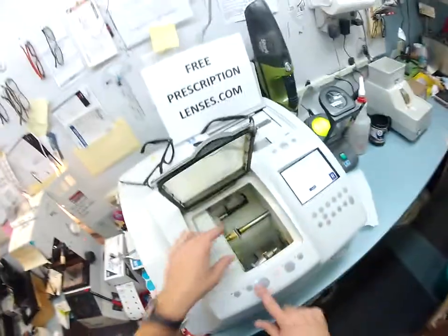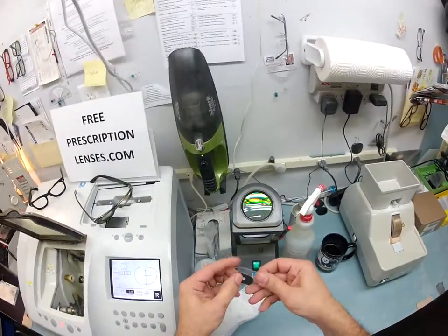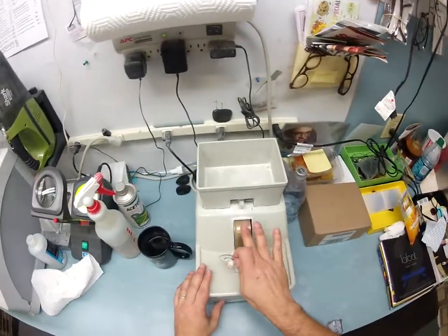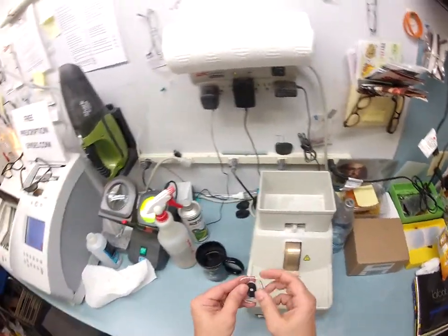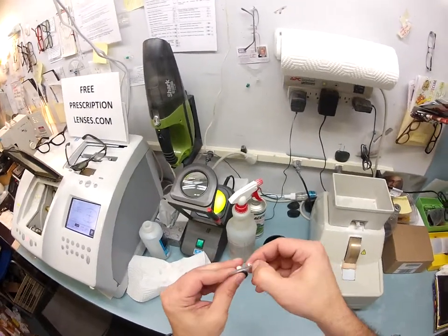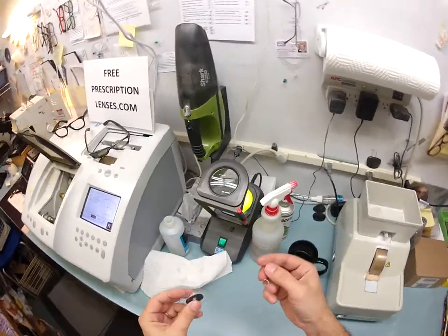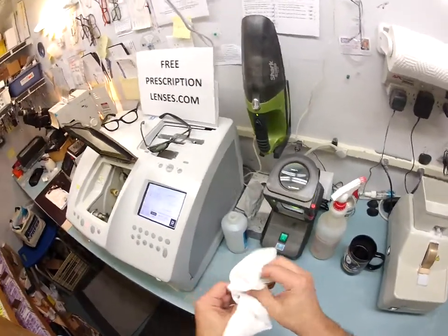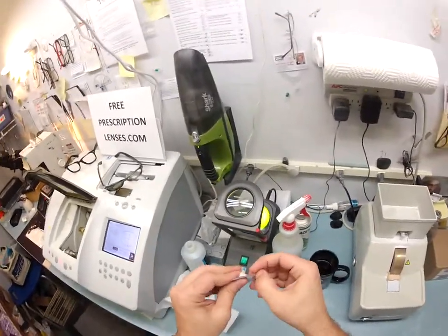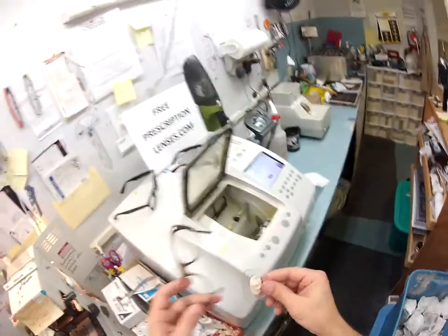Your lens is pretty much done. There are some rough edges, so I'm going to use my hand stone to smooth this out — it's completely flat so I can put my hand against it while it's running, but it smooths off all the rough edges. You see this white substance on here — it's called schwarf, optical sawdust that comes off a polycarbonate lens. I use my thumbnail, which I've worn a groove into — my friends call it my occupational thumbnail — to scrape away all the schwarf and wipe it on the floor, because I went to school for years to learn how to wipe stuff on the floor.